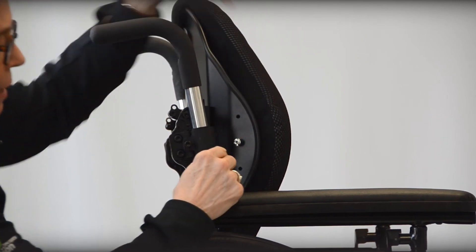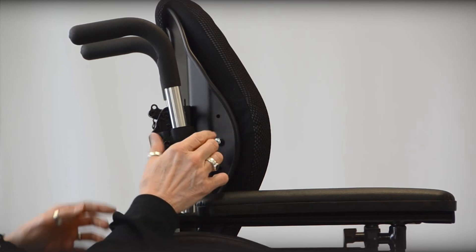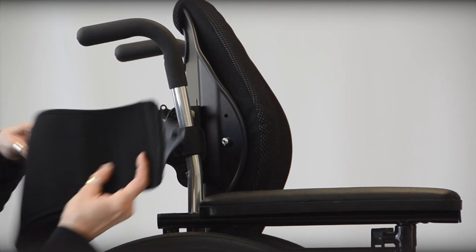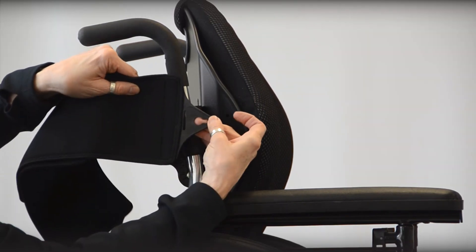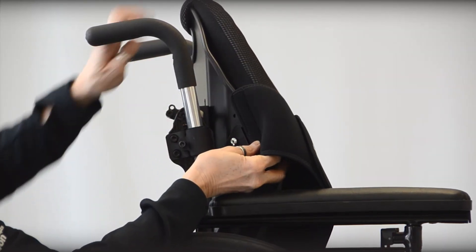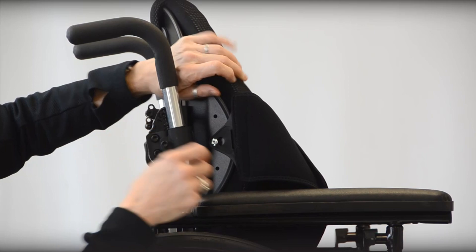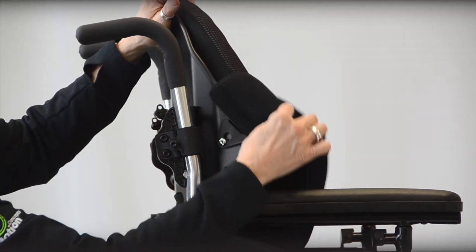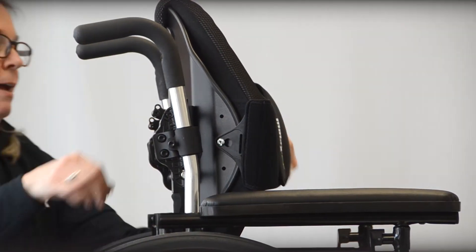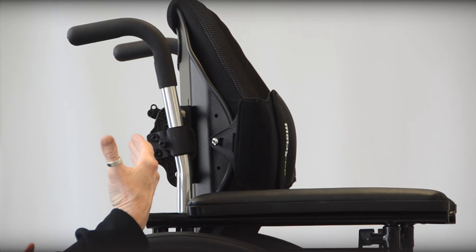I would typically be tightening this with a set of screwdrivers. I've already attached on the other side, so now I have my attachment point. On the Posture Flex you'll see this kind of keyhole opening where I'm going to be placing the large round aspect of that over the silver binder screw and pulling forward. You'll hear a little bit of a click — I can pivot around that point and bring it around the other side and easily attach this to add an anterior torso support.